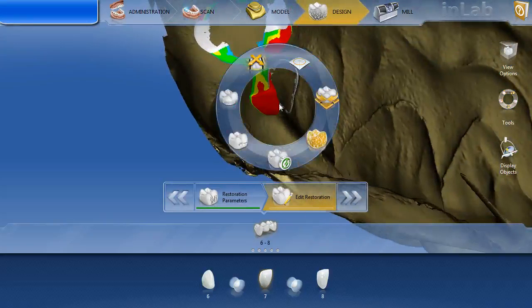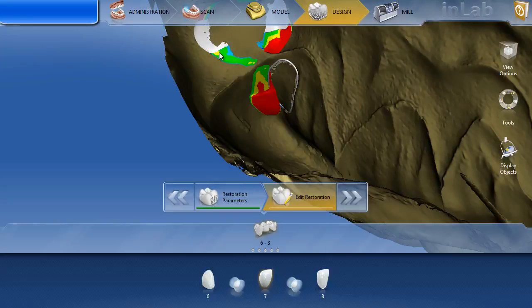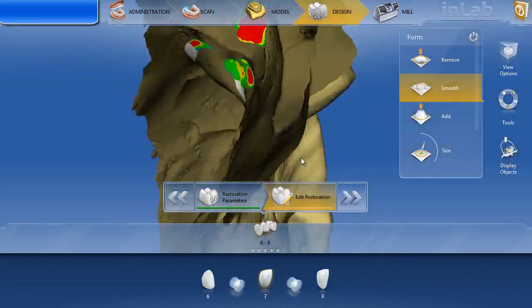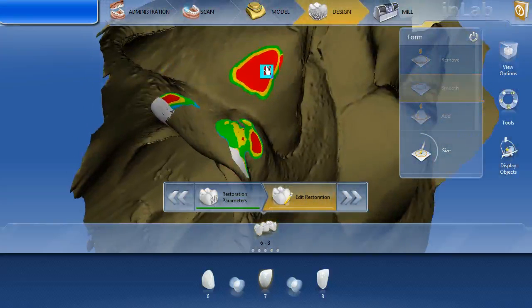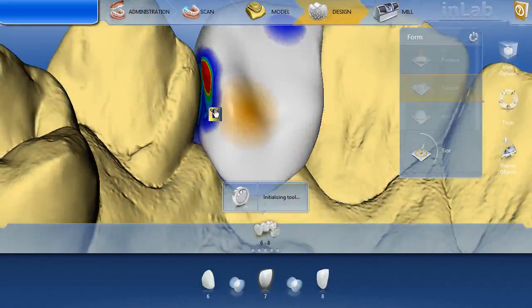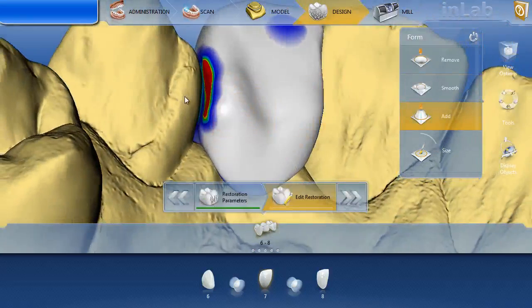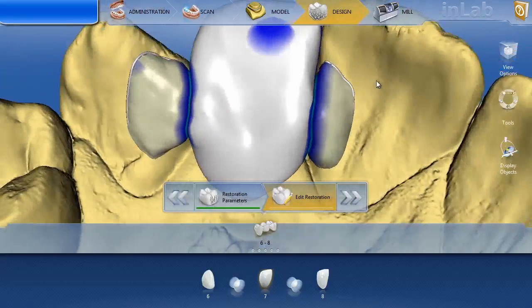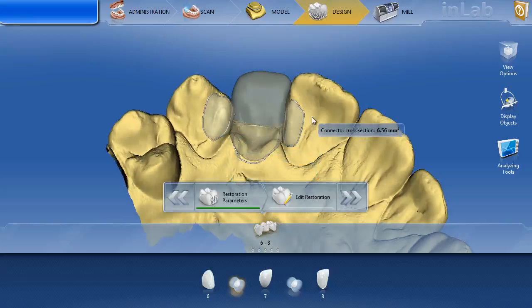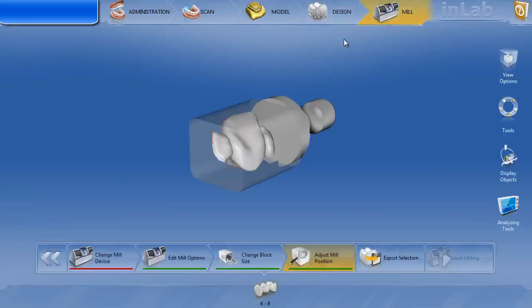The last thing we need to do is just check the binding. So we'll look inside — I definitely have some red. I'm going to double-click on that middle tooth to make sure we're working on the pontic. I usually start with the smooth tool, start smoothing it out — just like you're forming a contact on a tooth. If you like your contacts in yellow, make it yellow, because remember we're going into the adjacent tooth here. It should not be affecting your connector one bit. We'll stop it there. I might actually add some red down here in this connector area. We can double-check our connectors: 11.61 there, and 6.56. That's pretty good. We'll go to the mill phase and check out the internal — we should be ready to go.